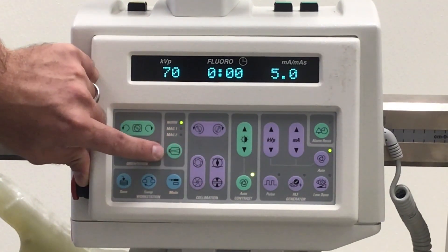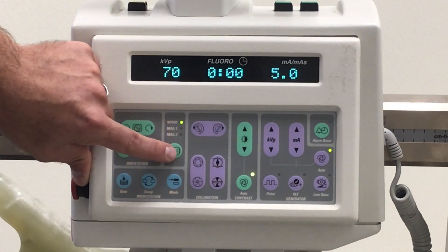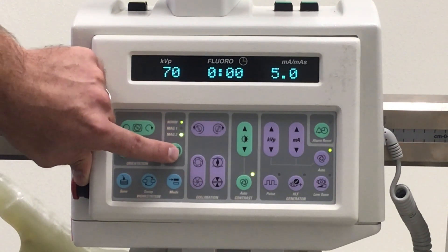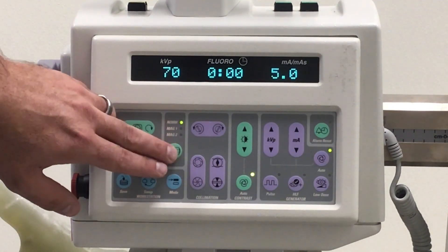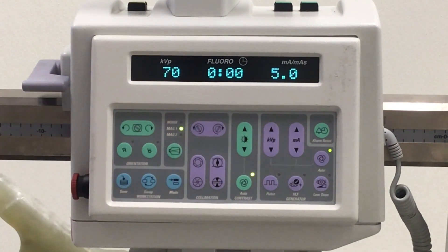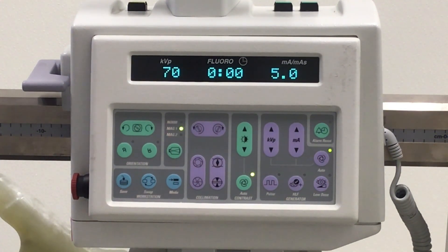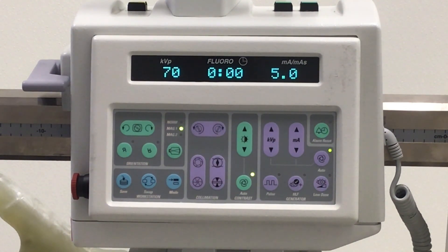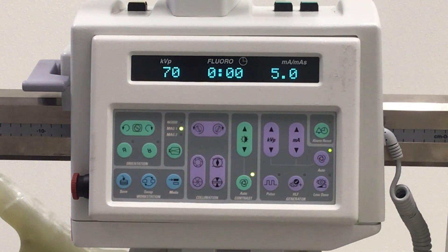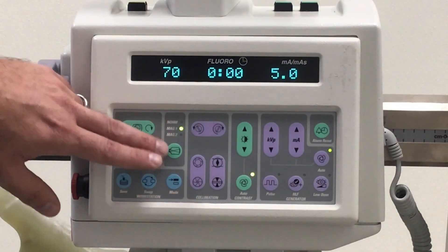The system always defaults to the normal magnification mode, but you can easily change it to MAG1 or MAG2 with a simple push of this button. When you're running one of these MAG modes, what you're going to see on the screen is a larger image. You may want to use MAG when looking at smaller anatomy, or when you're running guide wires, stents, or catheters.